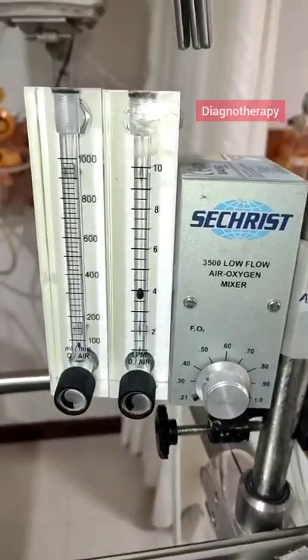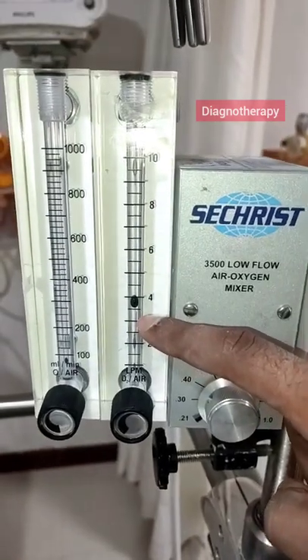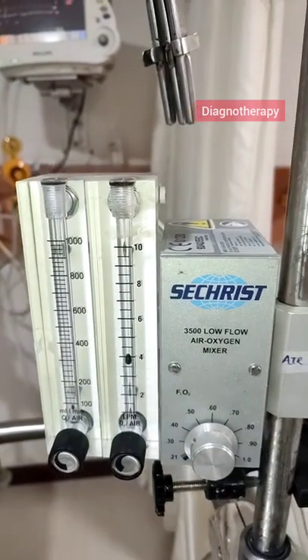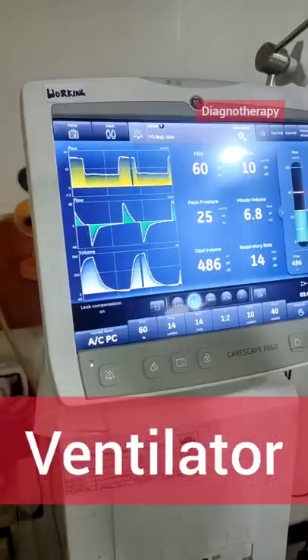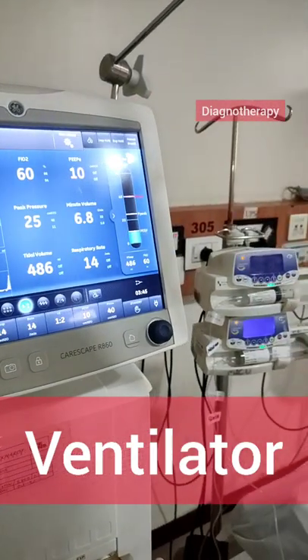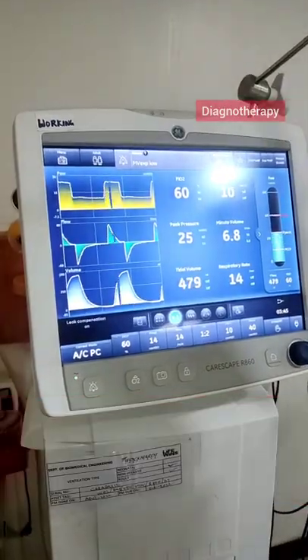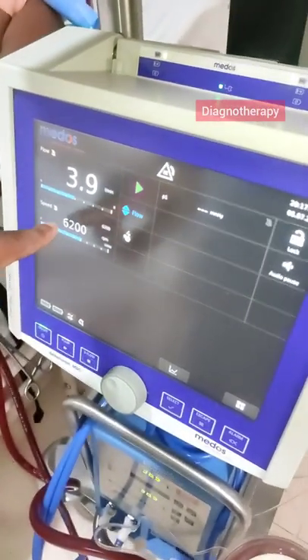Whenever there is extra pressure in either the oxygen or air, the blender releases that pressure and a mechanical alarm sound comes from the machine. The oxygenation part is taken over by the ECMO, but a ventilator is still used with a very small, "baby lung" type of setting, so that just contraction and relaxation of the lungs takes place.